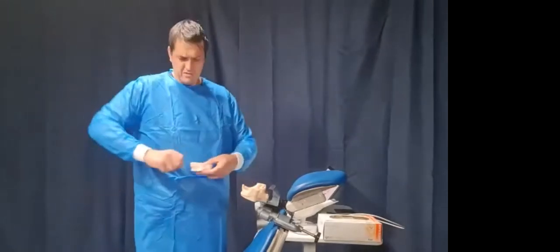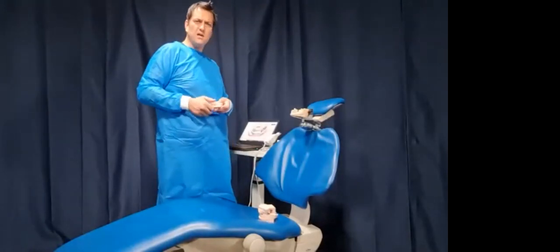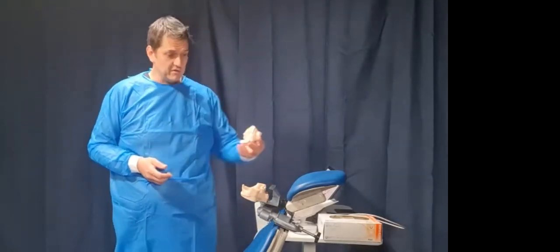So what I then do, let's pop that on our mannequin, on our dental chair. Now, the reason we keep putting these things back on the dental chair is because that's what it's really like. This is not real. When you've got a scanner and you're running around like this in training, it's not real. This is quite a nice little nifty device that our friends from Anatomic 4D made for us, which is good. And these models are fantastic because they can go straight on those tracks, which is lovely as well. So we'll put the head back on.